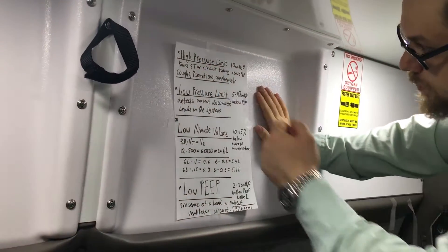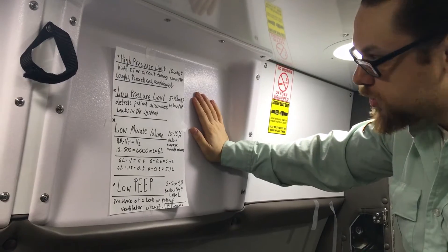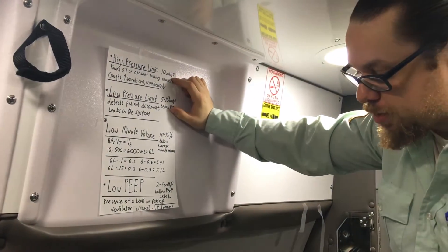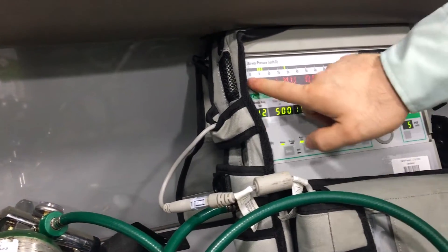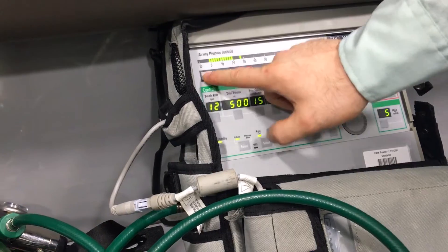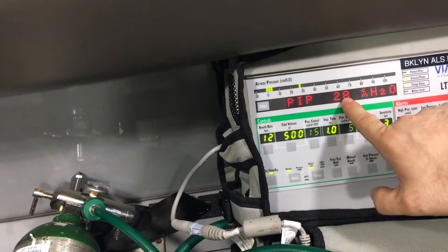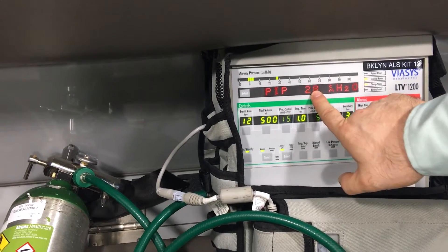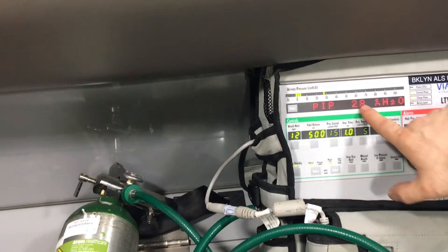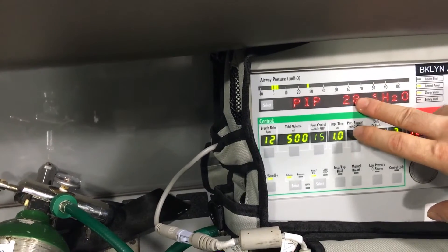High pressure limit — what does that mean? High pressure limit is set by the operator of the ventilator. Usually you want to be 10 centimeters of water pressure above the peak inspiratory pressure. The peak inspiratory pressure you can get by looking on the LTV1200 here, or you could just cycle through until you see peak inspiratory pressure. You could either get it from the gauge or just looking at the ventilator readout. So in this case it's 28, so you will set the high pressure limit 10 centimeters of water pressure above this number.